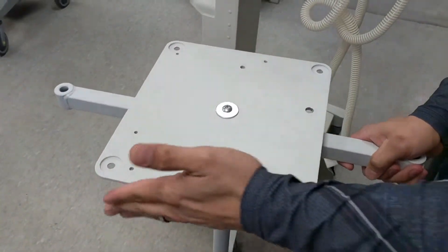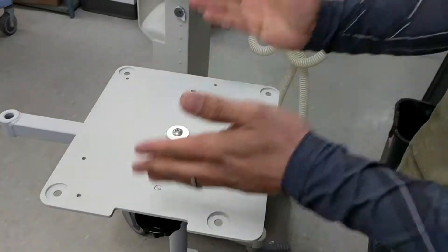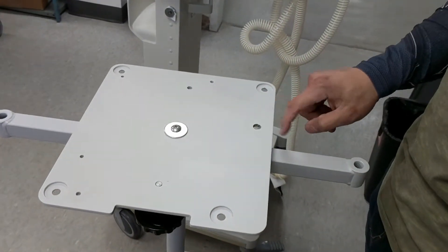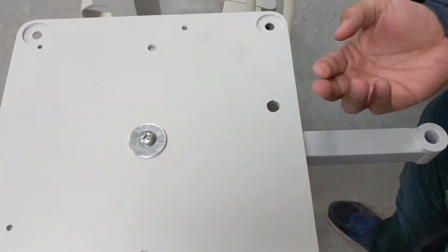The notch will stay as you're facing the cart on your left hand side, and then you'll also notice a screw hole here. It will be facing you.